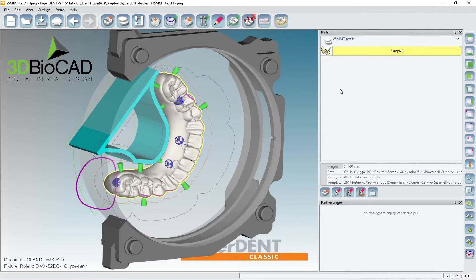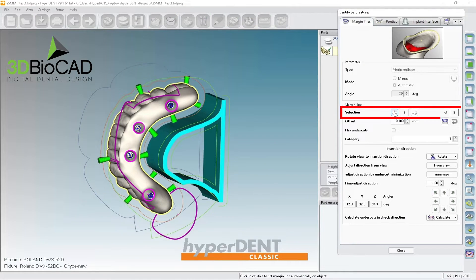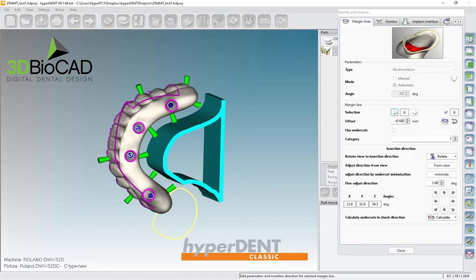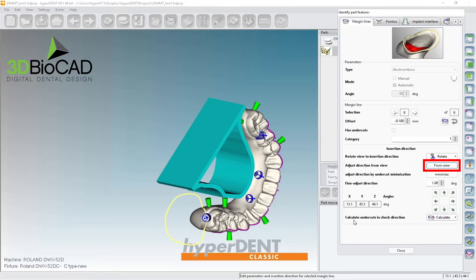So I go here, and I go here. This one I can make it like 44 degrees, but change the category to two. You can see this will create a space for the machine to actually go in.